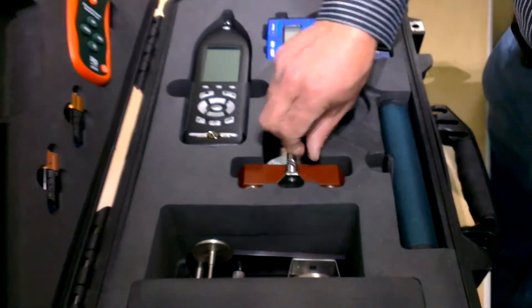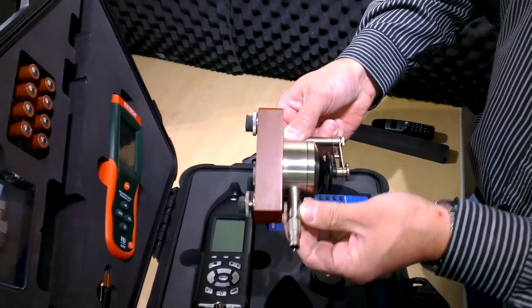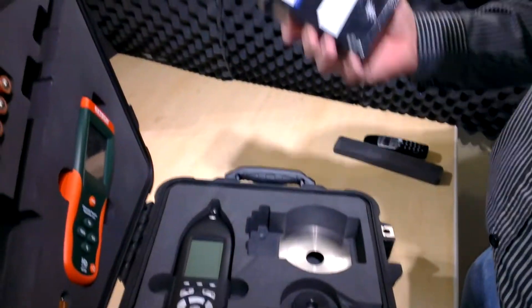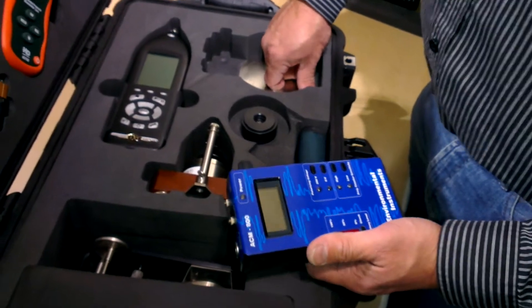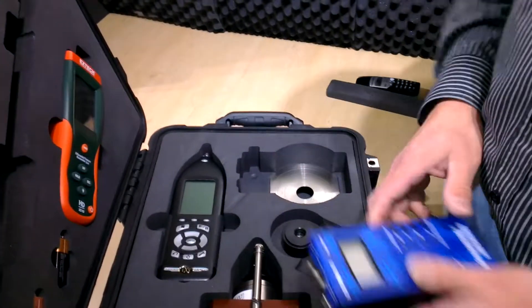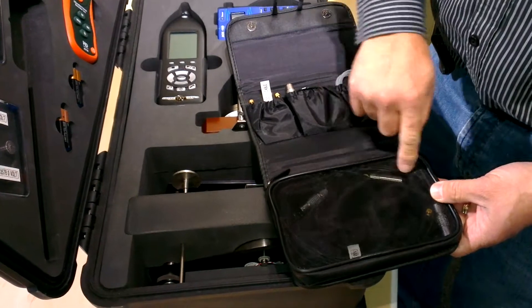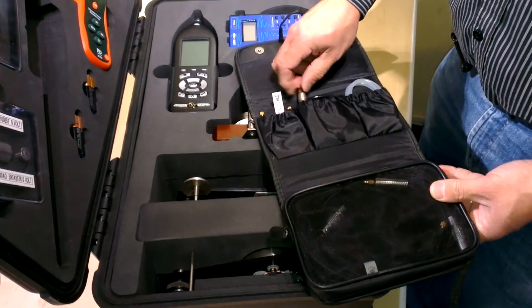The artificial ear is rather easy to pull out. Ensure that it is screwed properly, but it goes in even with its pre-amplifier screwed in permanently — just lower it in nicely. The sound level meter is fine. This is the ACM 800, locally developed — it's the power module, 200 volt supply, etc. The circum-aural plate is stored underneath that, for those requiring it on the artificial ear. All our cables are here: the free field calibration cable, the 5-meter cable is stored there, and the mastoid cable is stored there with its adapter. The short cable and various other cables are there as well.